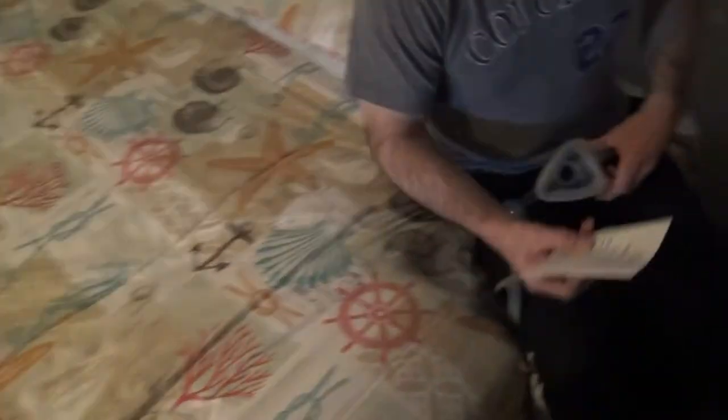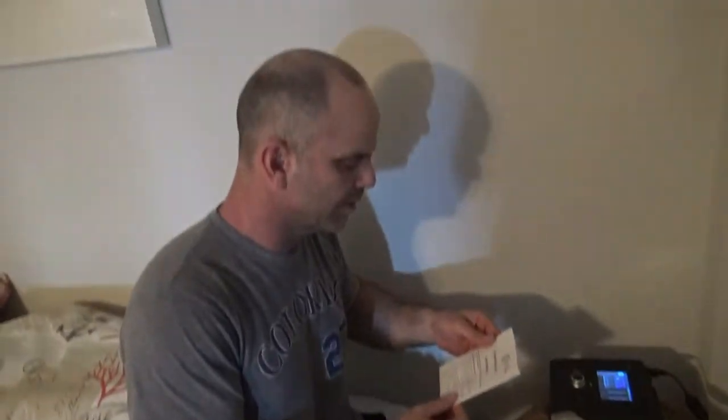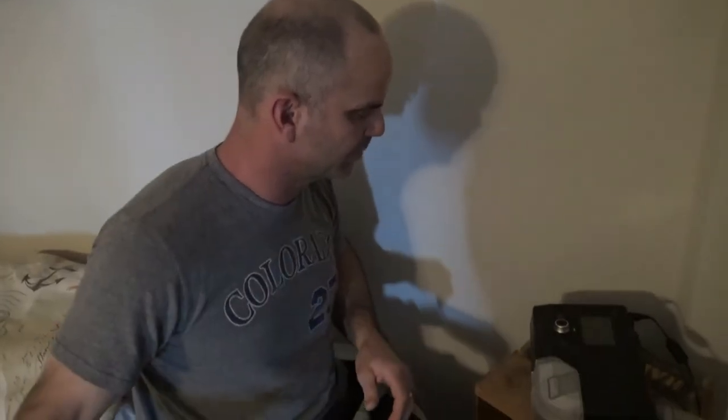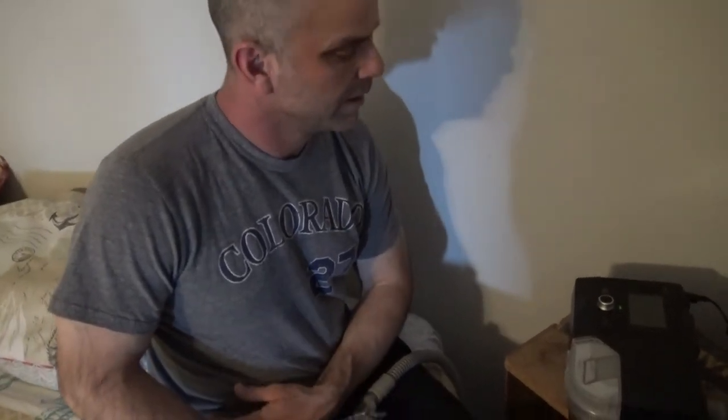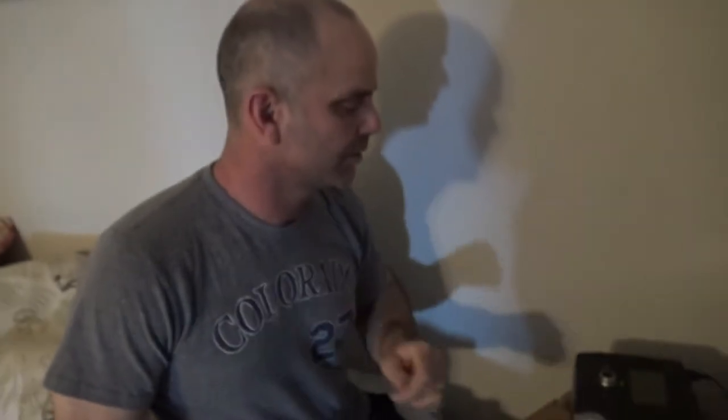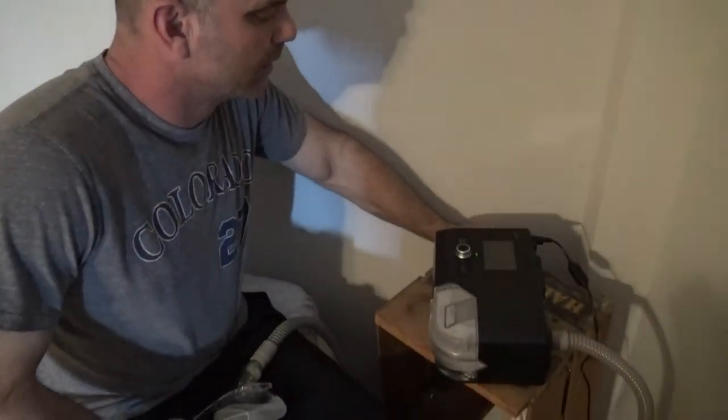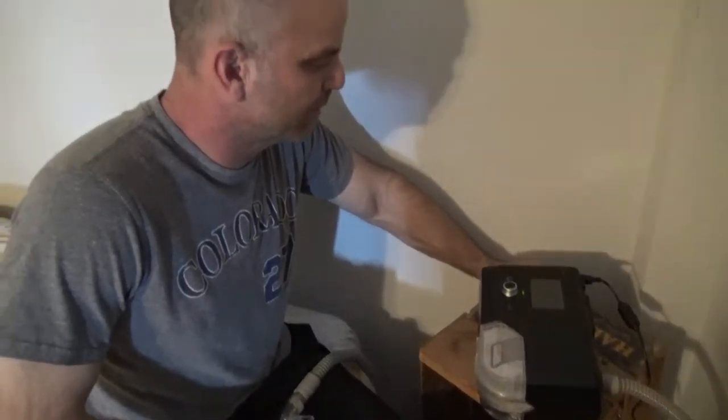Okay, this is my new 3B Luna digital CPAP machine. I got it because I was tired of waiting for my Philips Respironics DreamStation CPAP machine, which was recalled. It was taking way too long. I have a CDL and sleep apnea, so I needed a CPAP machine.